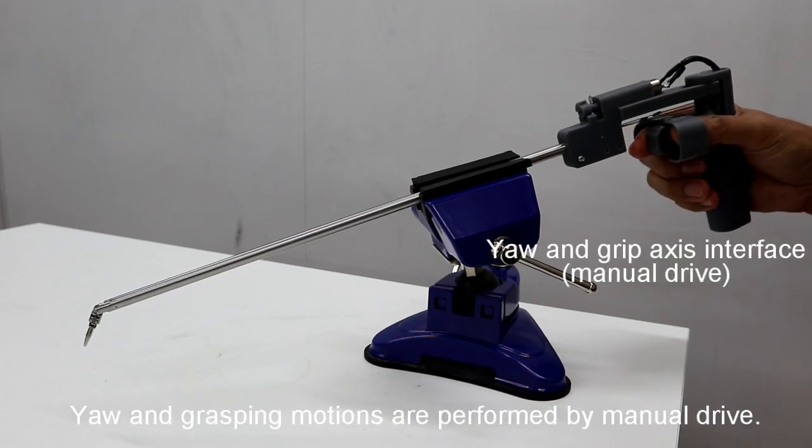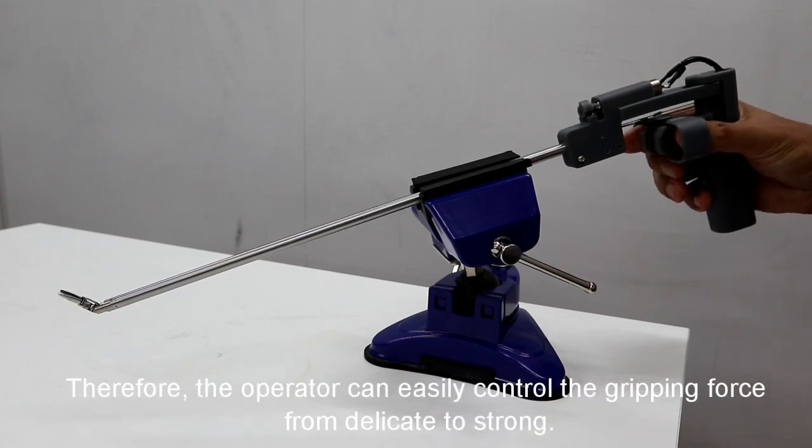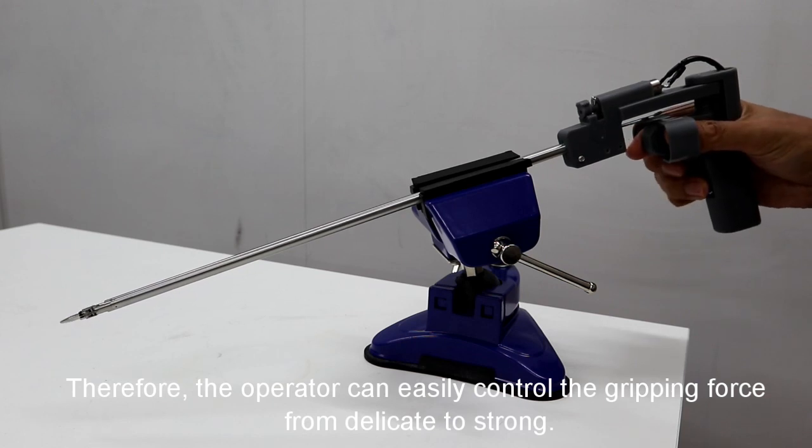Yaw and grasping motions are performed by manual drive. Therefore, the operator can easily control the gripping force from delicate to strong.